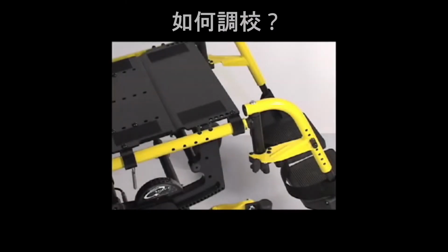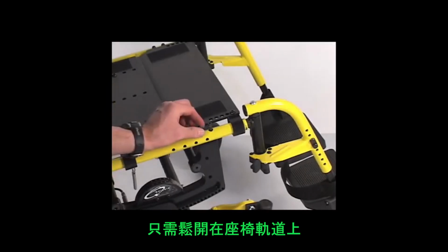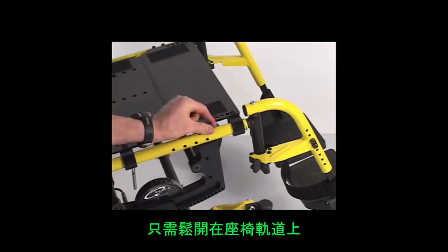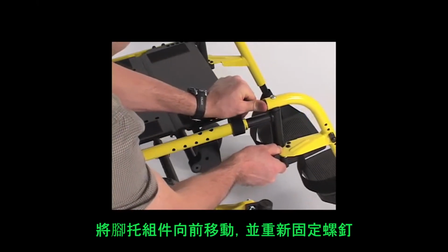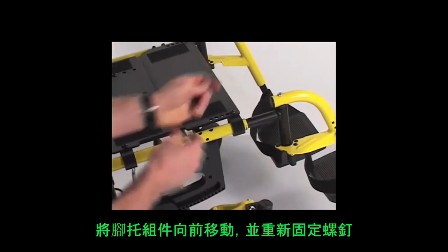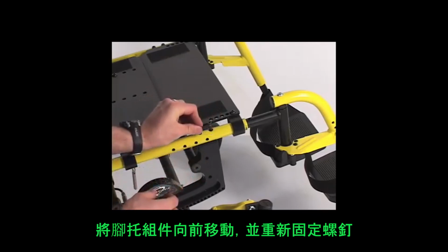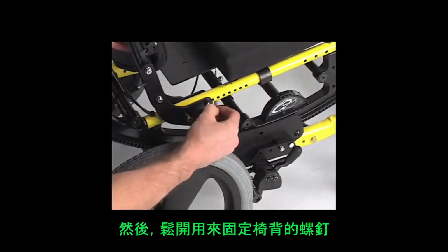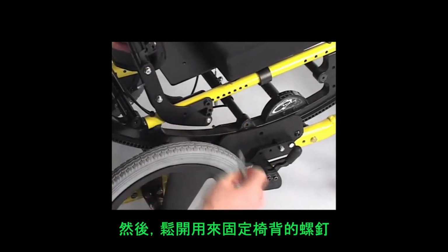In order to move the CG forward to the CR, or center of rotation, simply pull the two screws that hold the hanger assembly in place in the seat rail. Move it forward the desired distance and reinsert the fasteners. In the rear, pull the fasteners that hold the back cane assembly in position on the seat rail and move it forward the same distance.